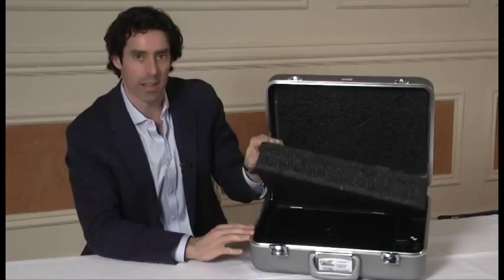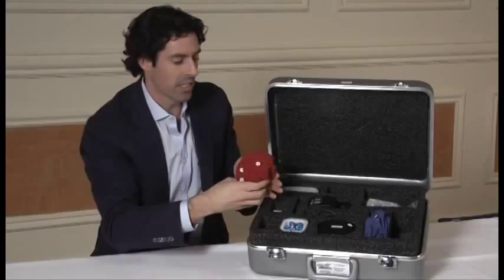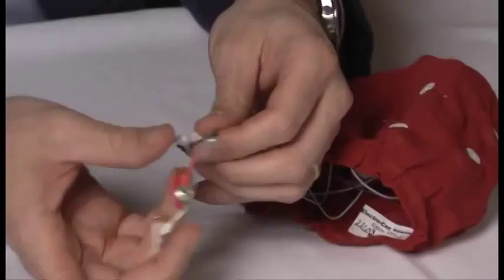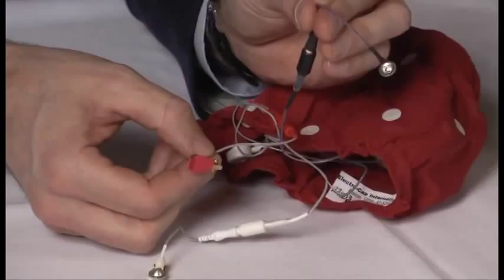A laptop computer is housed underneath in the case. The case contains, from left to right, a standard FDA approved EEG cap with 19 channels and a connector ribbon. The cap has 19 EEG leads and three alternate leads: left ear, right ear, and electrocardiogram, which is placed on the chest.